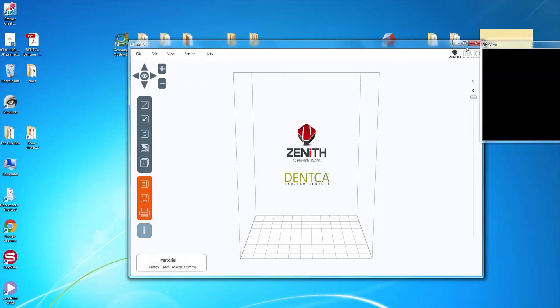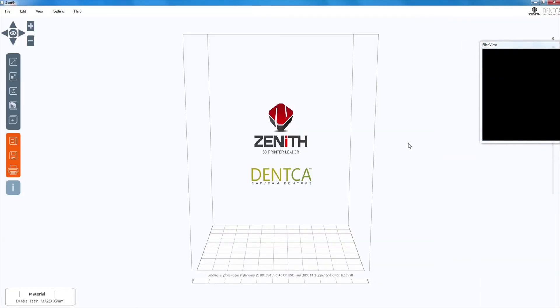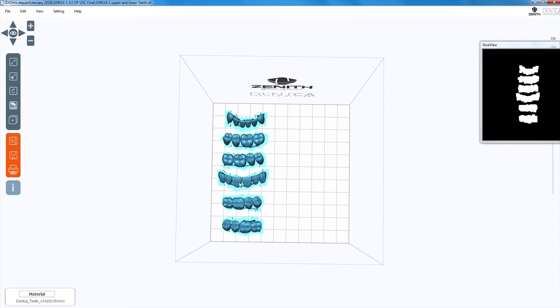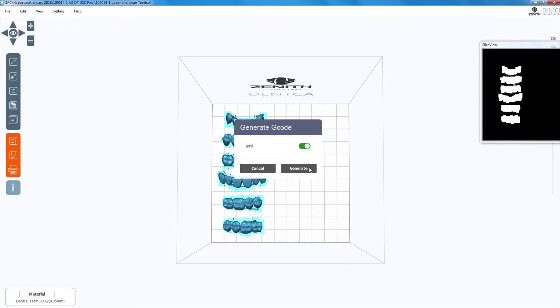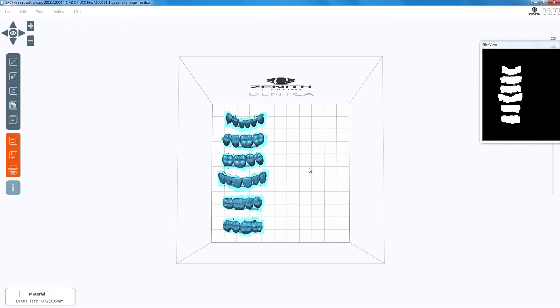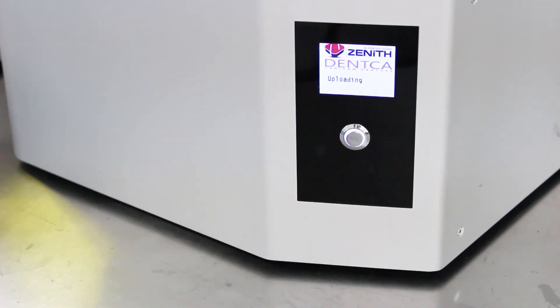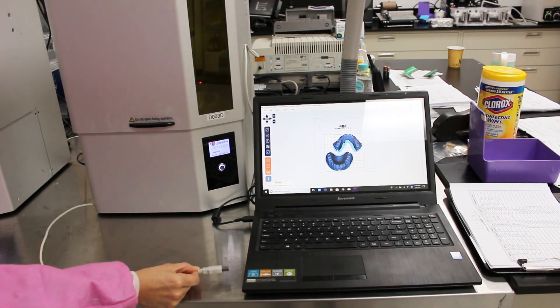Select the type of material you will be using, then load the files you are printing. If printing teeth, it is recommended you put them on one side of the plate and alternate sides between prints to ensure you lengthen the life of your resin tanks, as they have a limited set number of uses. Once ready, click on the print icon and then click on Generate. If done correctly, your printing should start and say Uploading followed by Printing Starts. Once you see the timer, unplug the USB cable and make sure you do not open the lid until it finishes, as printing will stop and you will have to start from scratch.